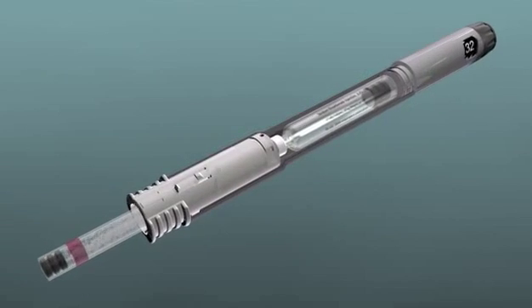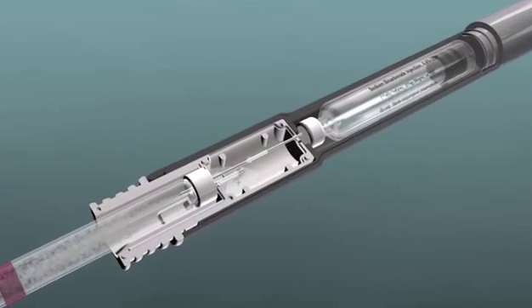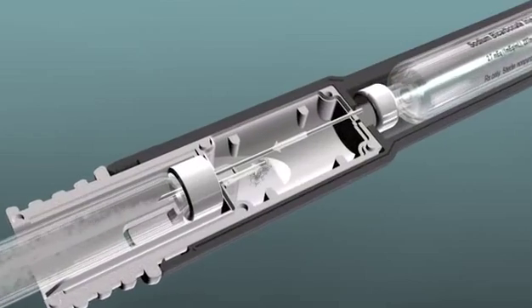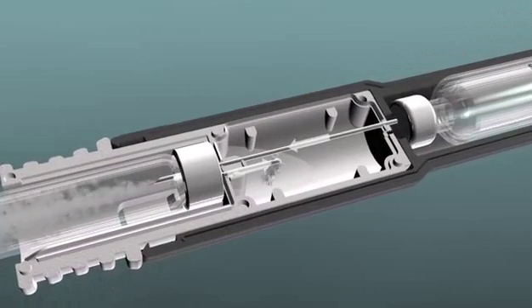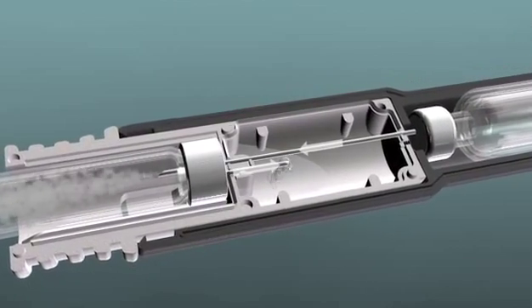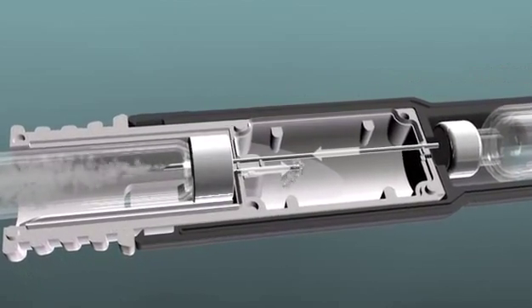Upon activation of the dispensing button, fluid is advanced from the sodium bicarbonate cartridge into the anesthetic cartridge via one needle path, while simultaneously excess anesthetic is moved from the anesthetic cartridge to a waste reservoir via a second needle path.